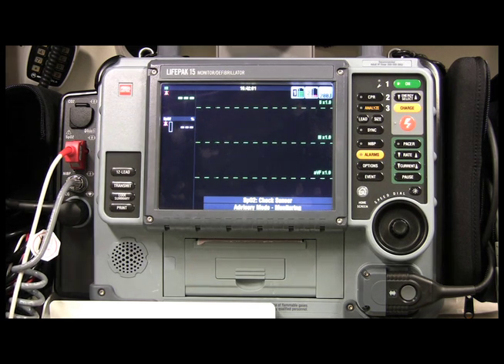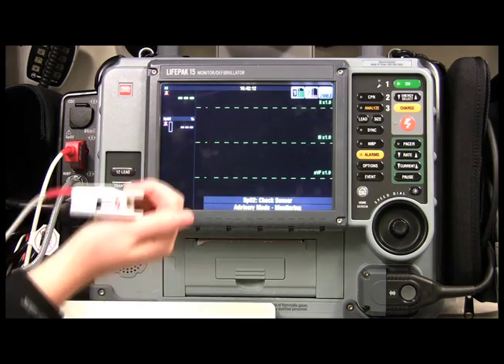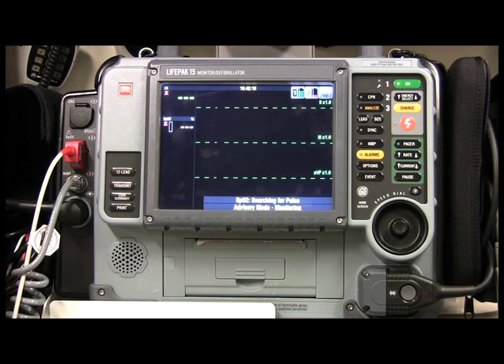Now let's start taking some vitals. I'd like to start with pulse and pulse oximetry. As you can see, my SpO2 line is already connected. I'm going to take the little probe and enclose it around my finger, and in a couple of seconds we will get some readings.